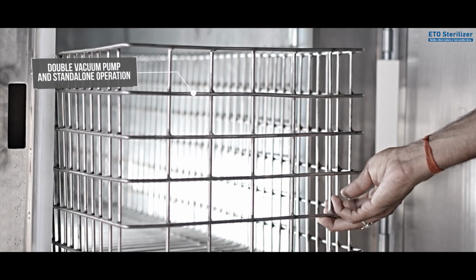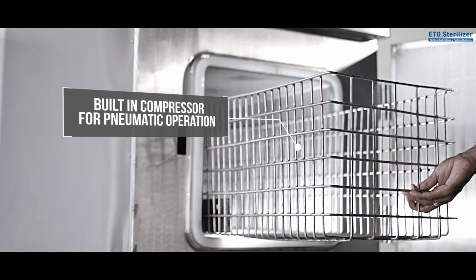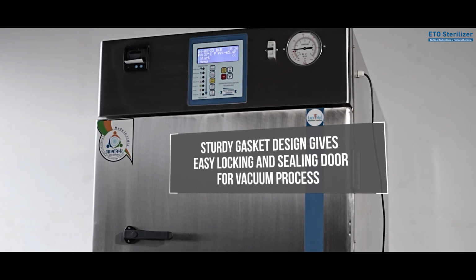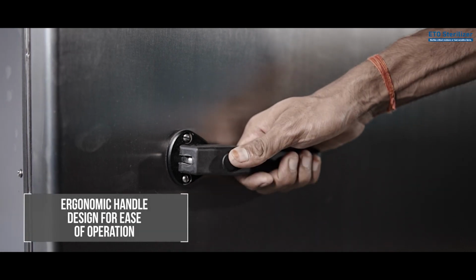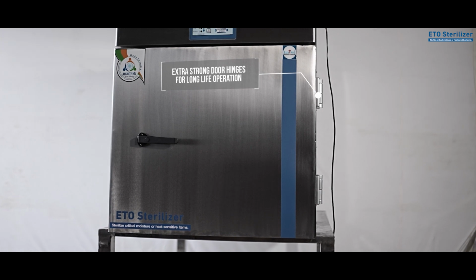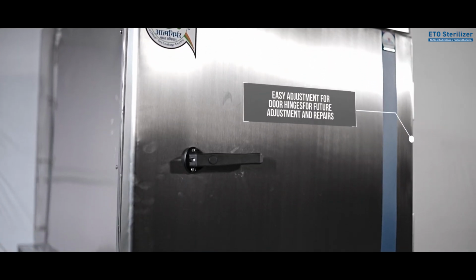Double vacuum pump and standalone operation. Built-in compressor for pneumatic operation. Sturdy gasket design gives easy locking and sealing of the door for the vacuum process. Pneumatic ETO injection process. Ergonomic handle design for ease of operation. Extra strong door hinges for long life operation. Easy adjustment for door hinges for future adjustment and repairs.